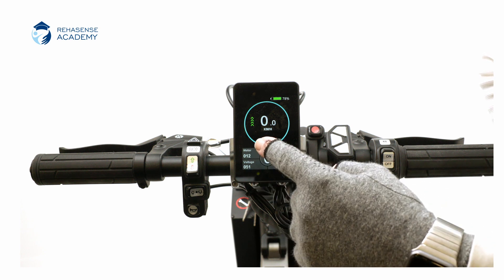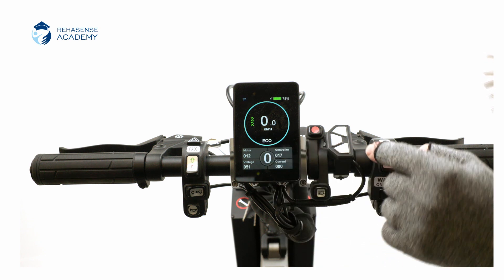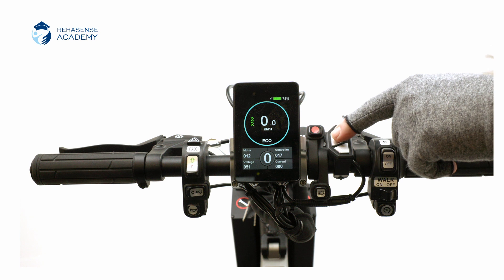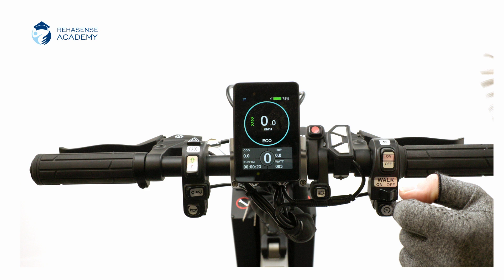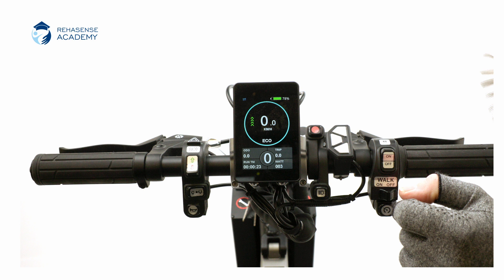This is mainly unimportant for you as a user. If you press the power button once, you will enter the other part of the information. From the top left, you find the ODO, which is the overall distance, the trip distance, the actual running time, and the watt, which shows you the power output continuously when you are driving.